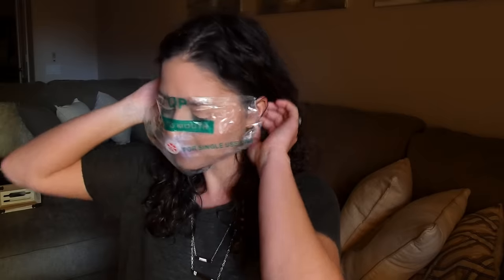This little keychain is perfect for those types of situations. When you open it up it comes with two things. The first thing is this mask, and this mask's purpose is for you to be able to do mouth to mouth or CPR on someone but also be protected from germs. I don't know about you guys but if someone goes down in public I am not going to put my mouth directly on theirs. So it's super quick to open up and then you just slide it over the person's ears like this. This is what I look like if you were doing CPR to me — which hopefully that never happens — but if you do, you'll be prepared with this mask.